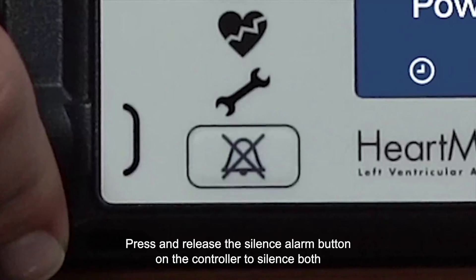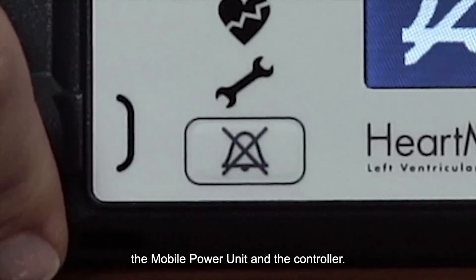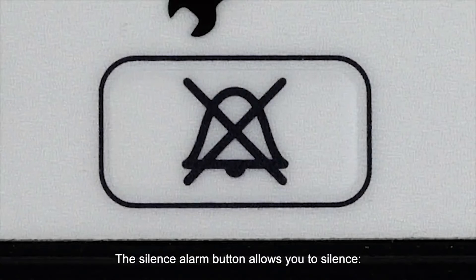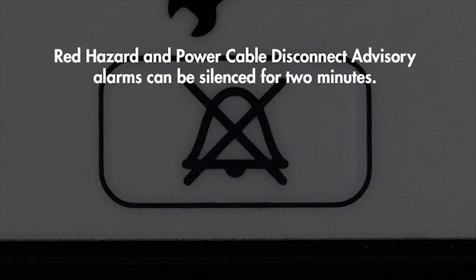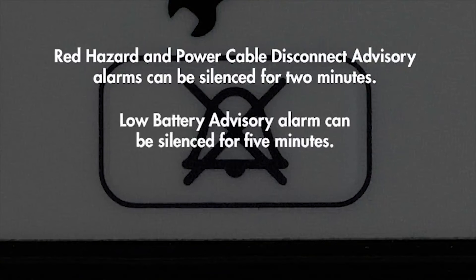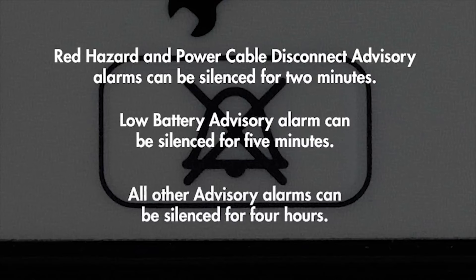Press and release the silence alarm button on the controller to silence both the mobile power unit and the controller. The silence alarm button allows you to silence the red hazard and the power cable disconnect advisory alarms for two minutes, the low battery advisory alarm for five minutes, or other advisory alarms for four hours.